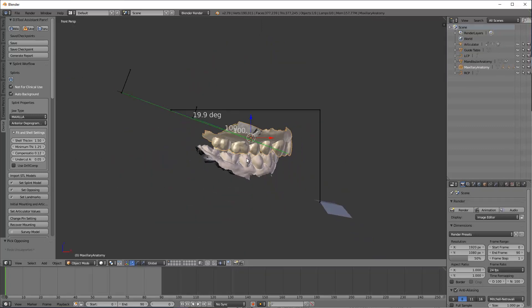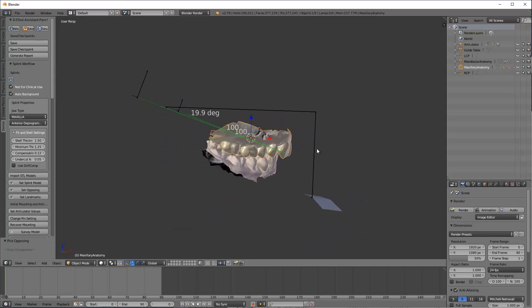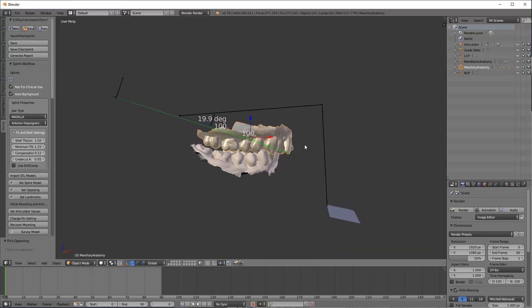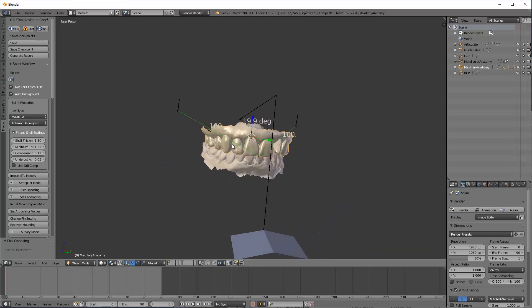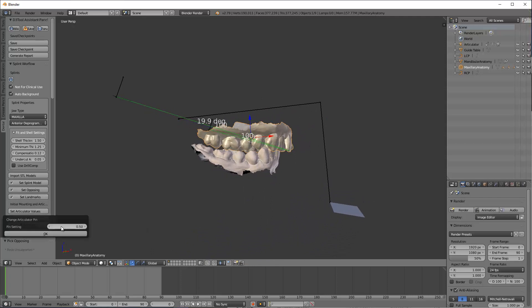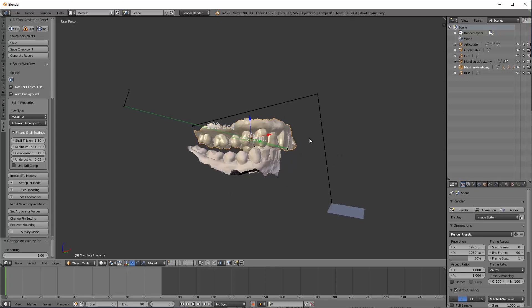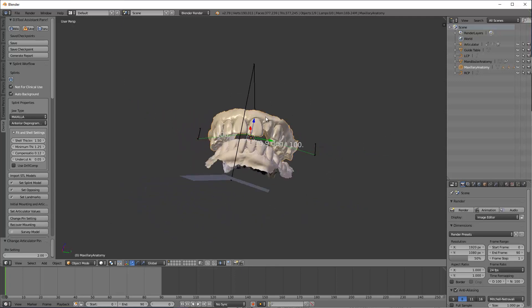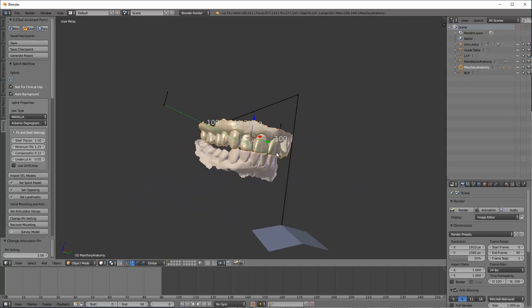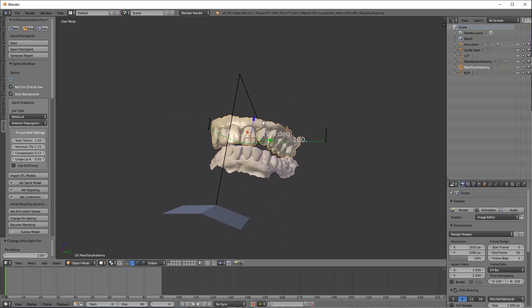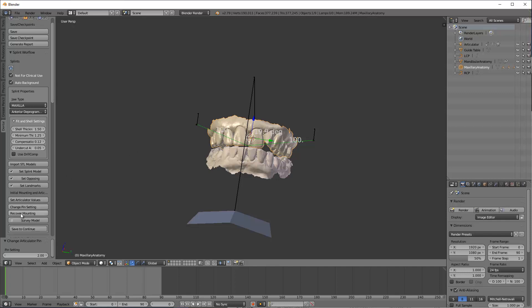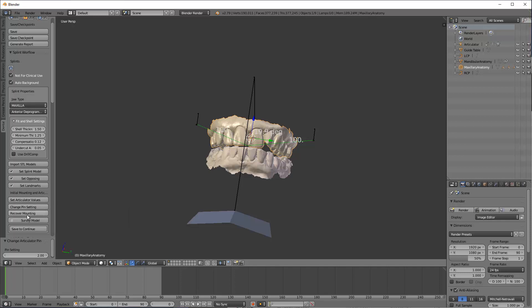Here's a virtual articulator. Now, if you need to open up the bite a little bit, you can. If you've taken it in occlusion, which I don't recommend, but if you've taken the bite relation in occlusion, this is your opportunity to change the pin here. So I'm going to go ahead and hit change pin setting because I do want to open her because she's got such a deep bite. And I'm going to go ahead and change this to 2.0. Not completely opened up, but I think I can work with this. I don't want to open her too crazy. It'll be uncomfortable for her potentially, but I can work with that. Set articulator values is if you need to really mess with the articulator, which I almost never do. And recover mounting is just if you've opened the bite too much or closed too much and you want to go back to normal, go ahead and click that button.